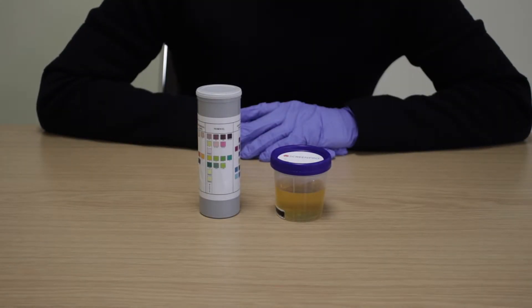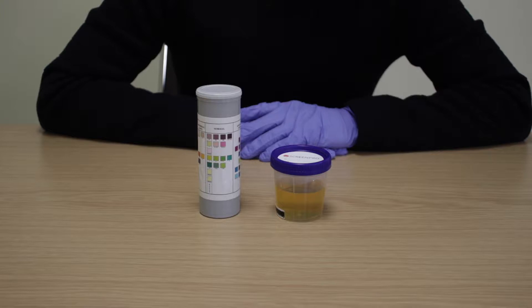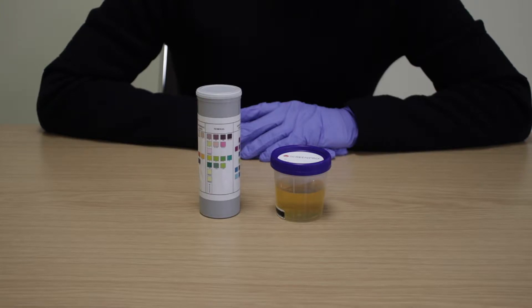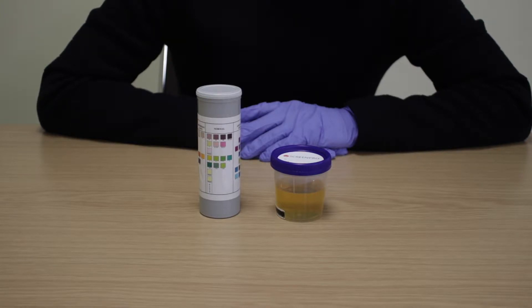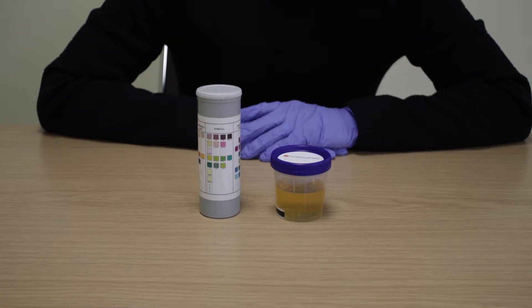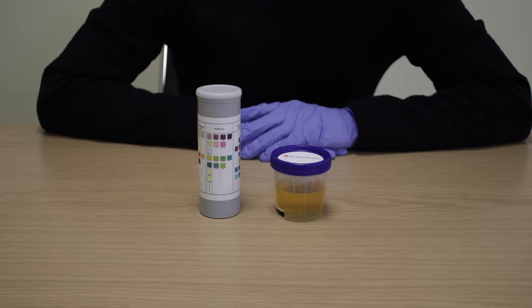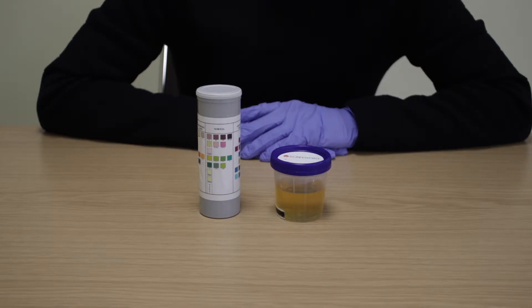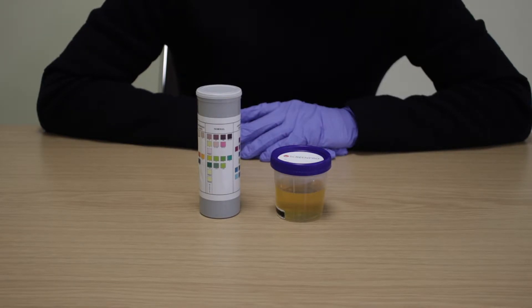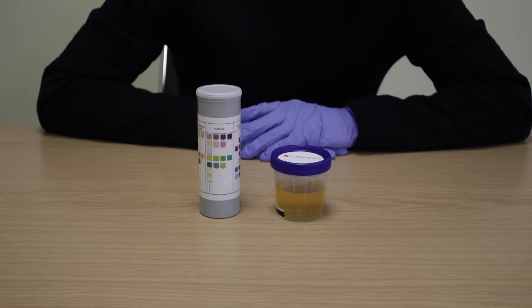Welcome to our product and user guide videos. Today we are going to demonstrate how easy it is to test the urine sample for adulteration. Urine samples can be diluted or adulterated by individuals who are trying to falsify a urine drug test.